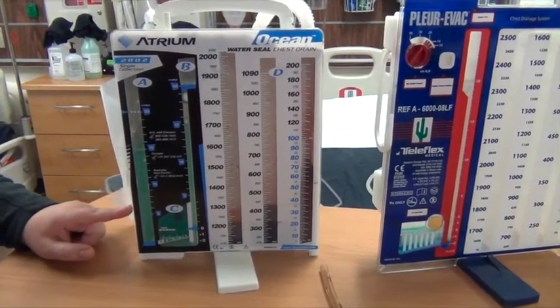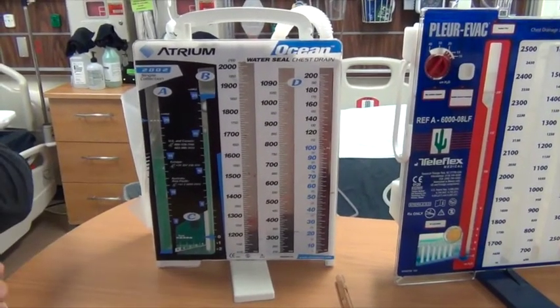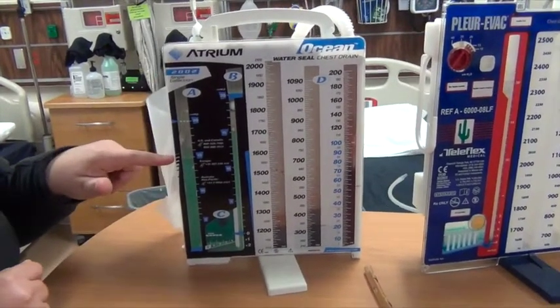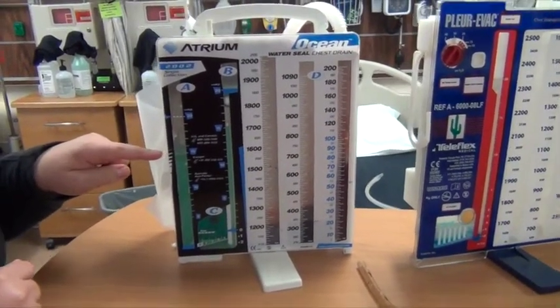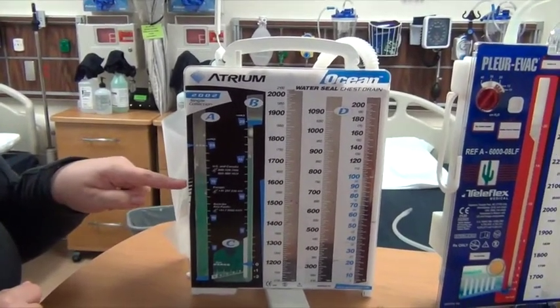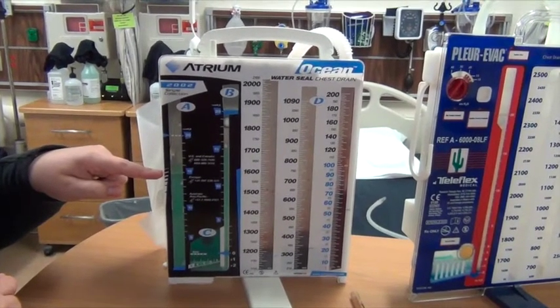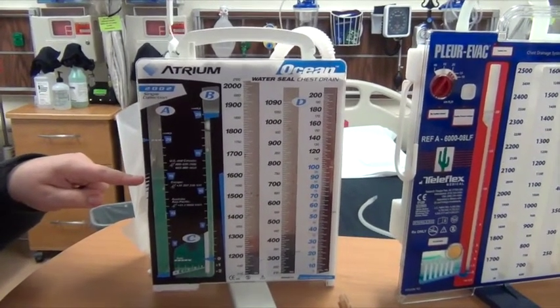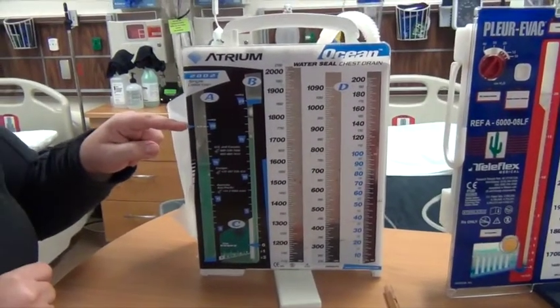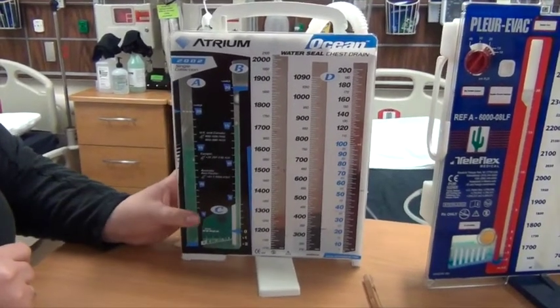It's kind of like if you went to go boil a pot of water on the stove. If you let it boil for too long, some of the water is going to evaporate. So you have to keep your eye on making sure the water level is at your ordered level of suction. If the doctor changed it to 20, you could easily fill it up to 20. If they decrease the suction, you would have to get a whole new system.